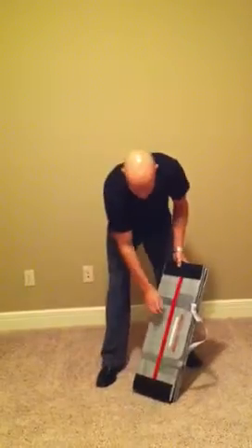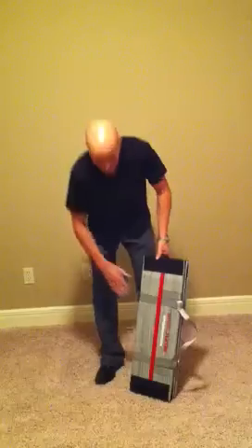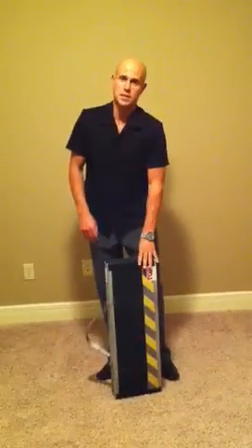They are made of fiberglass, so they're very lightweight and they have a smooth side, so if you are picking them up you don't have anything on the outside rubbing your pants. The other nice thing is it does hold 660 pounds.